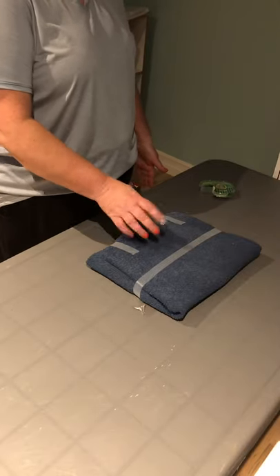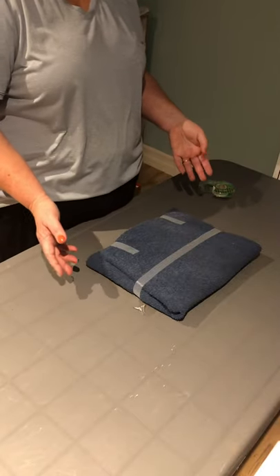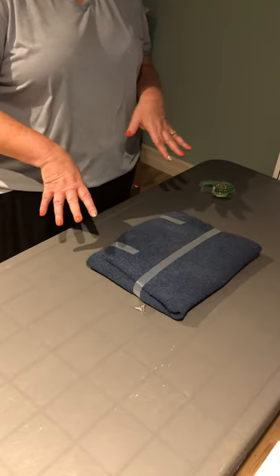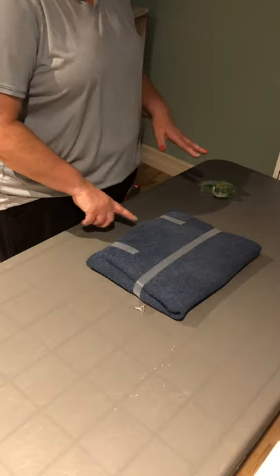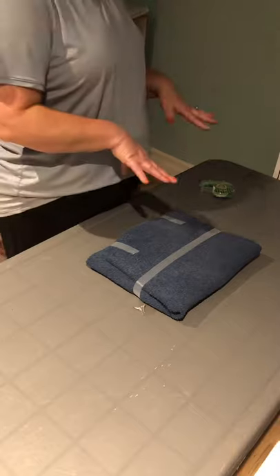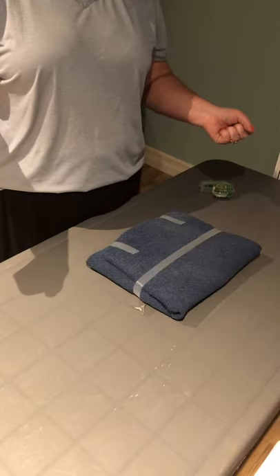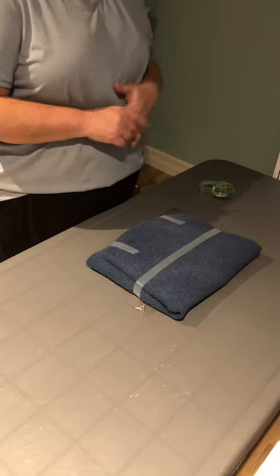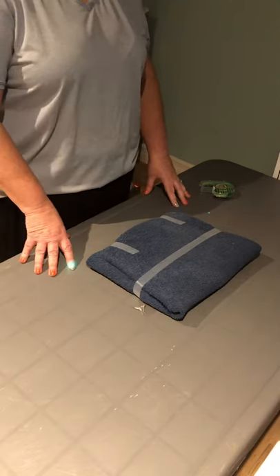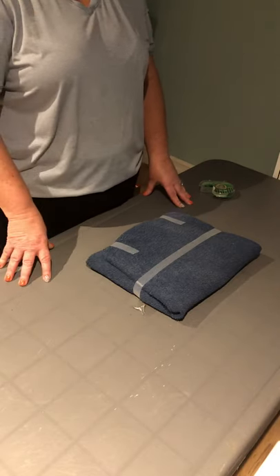The reason for the tabs is for the staff in the OR or in another department where they're using the sterile instruments. They use sterile technique for opening the packages, using the tabs in sequential order — opening the top flap first — and this helps prevent contamination of the contents of the package. And so that's my demonstration of the envelope wrapping technique. My name is Mary Wardle, and thank you.